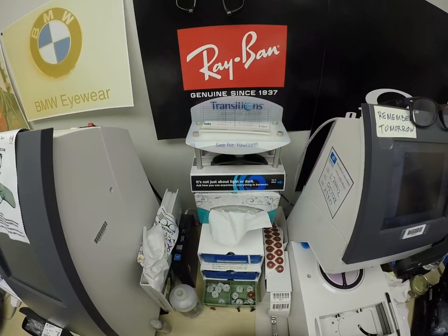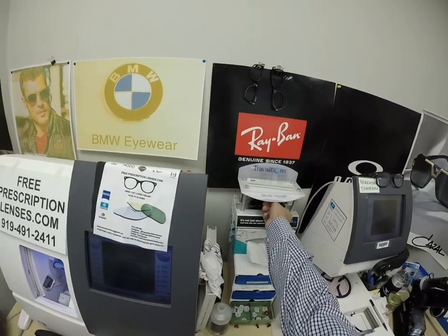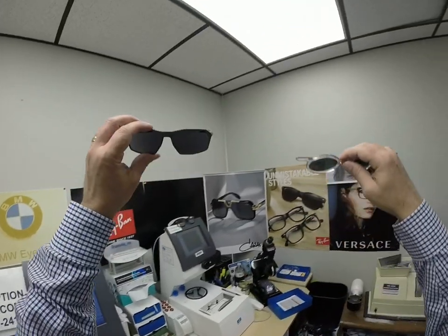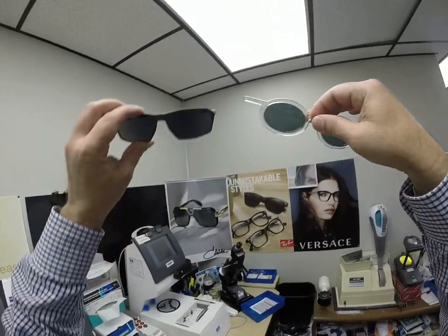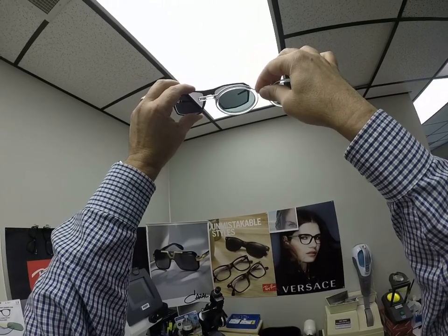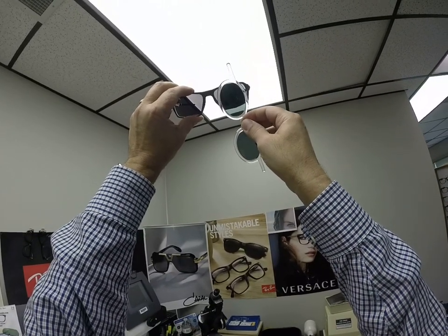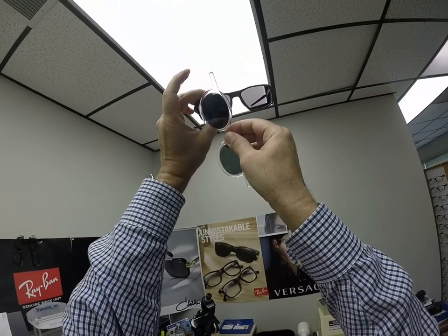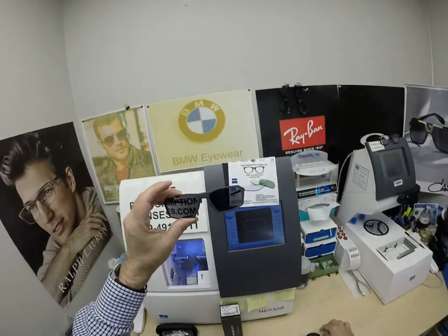These will get 30 to 50% dark behind a windshield. Now, the way to test if something is polarized: you take another polarized lens, hold it in front — you should be able to see through it while they're on the same meridian. You hear the term polar opposites — you turn it 90 degrees and it goes pitch black. Same for the other lens: pitch black.